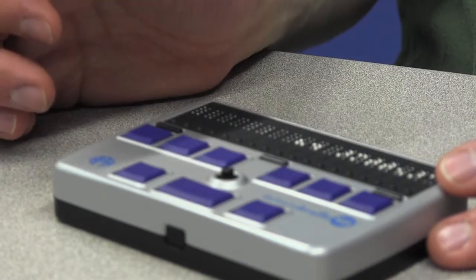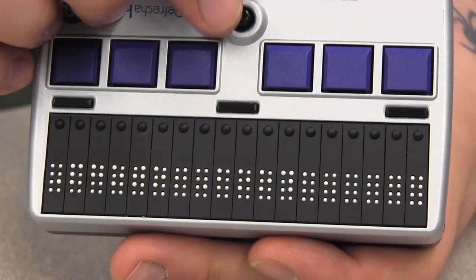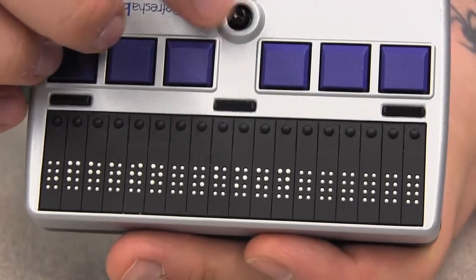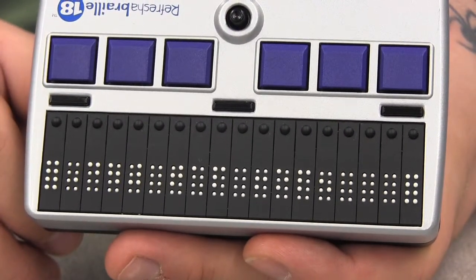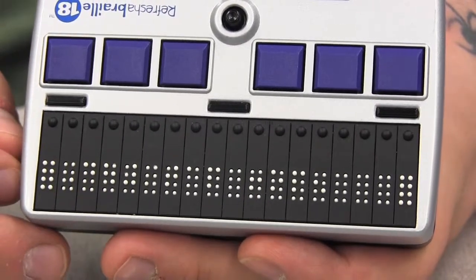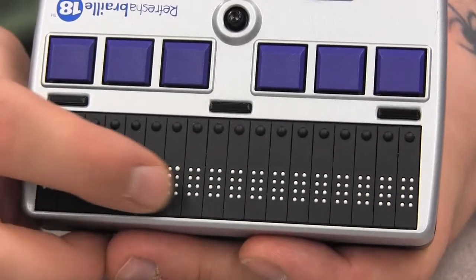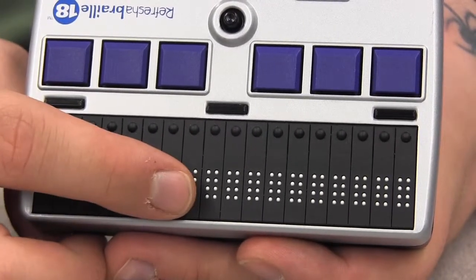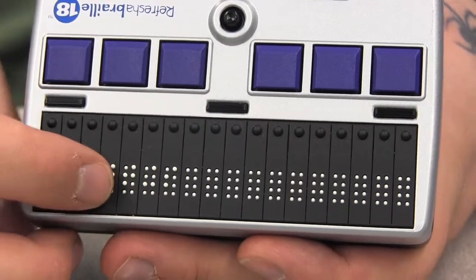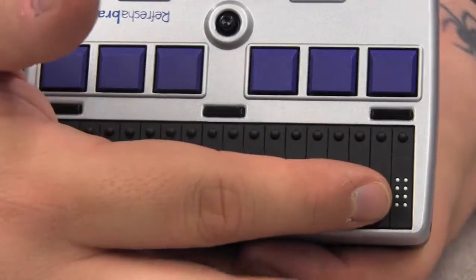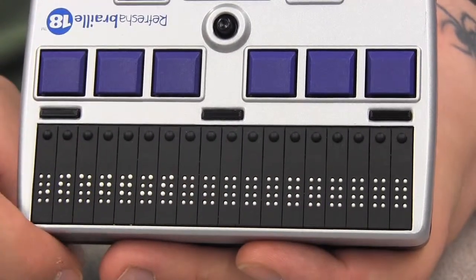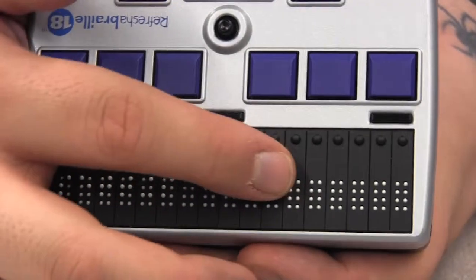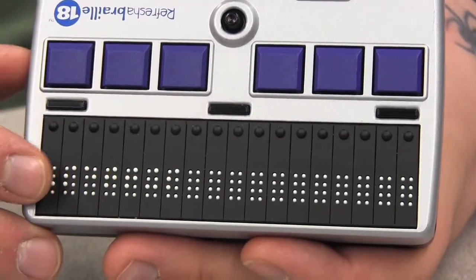Settings. Settings. I'll show you this one more time. Settings, double tap to open. As I move to the settings icon, the settings word was displayed on the Braille display in addition to the double tap to open hint. The hint then disappeared and all I'm left with right now is just the word settings.